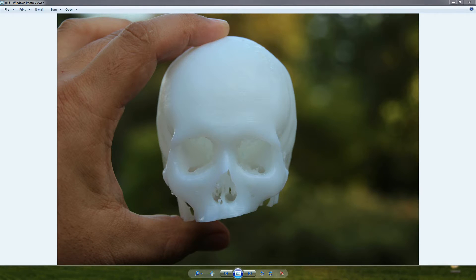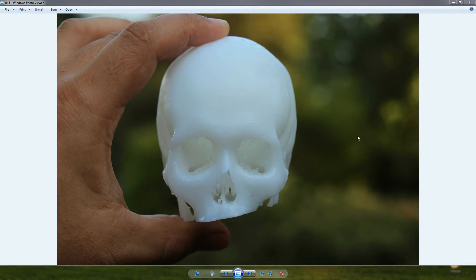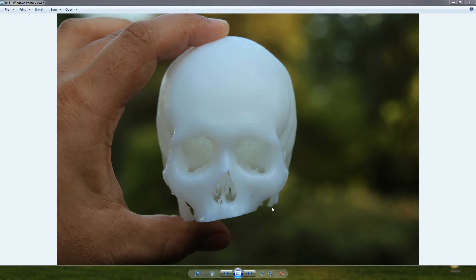Hello, it's Dr. Mike here again with another tutorial on medical 3D printing. Today we're going to be learning how to create a 3D printable skull file using free software on the Windows platform. We will be using Blender, Mesh Mixer, and a software package called 3D Slicer. All three of these software programs are free. This is a picture of the model that we'll complete during this tutorial and you'll be able to 3D print at the end.